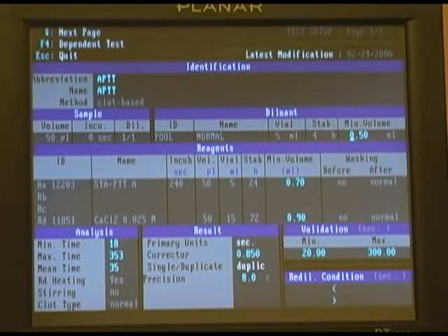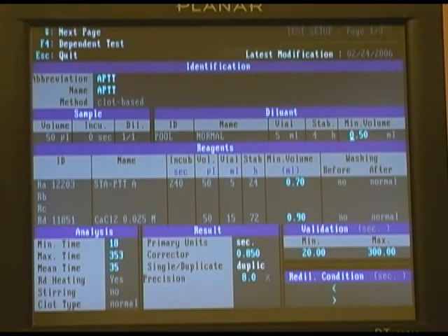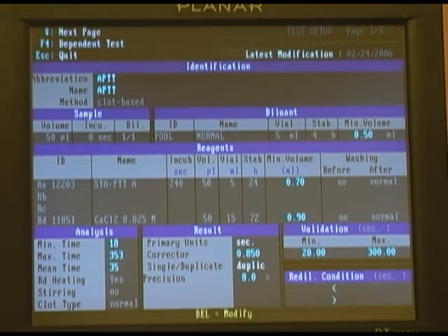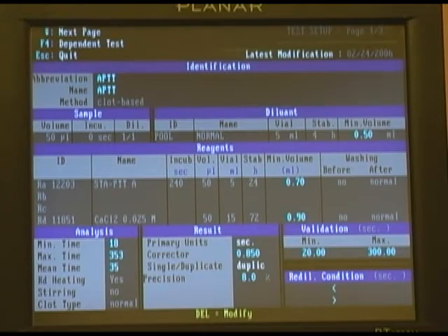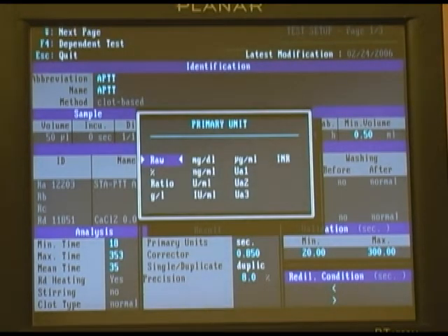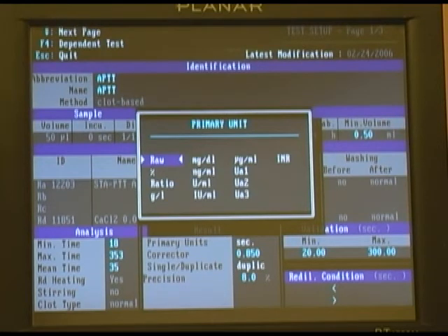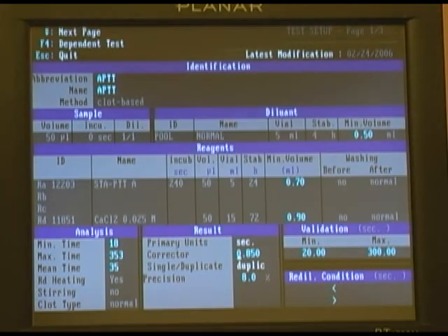The primary results on this test are currently identified in seconds, but they can be changed if you choose to do so by highlighting that particular field and pressing the delete key. The primary unit can be identified in multiple different ways.